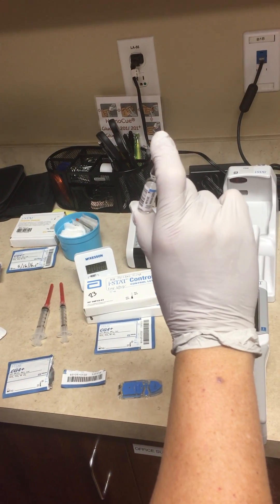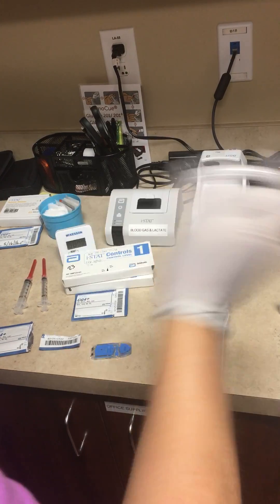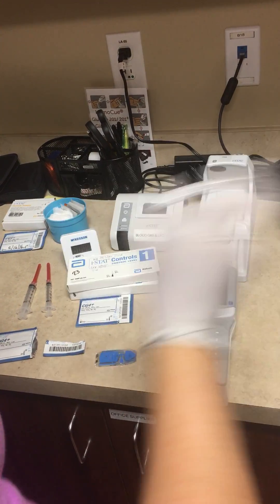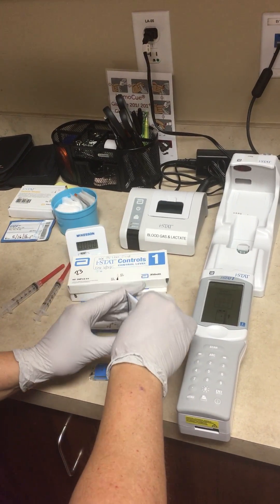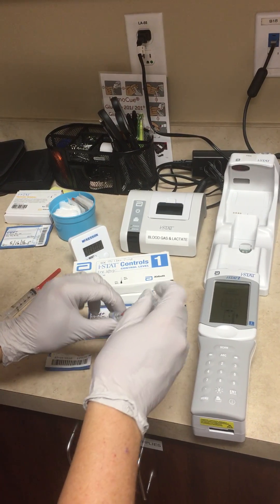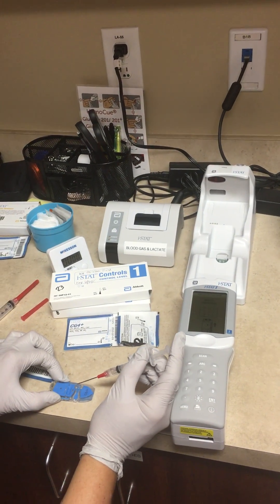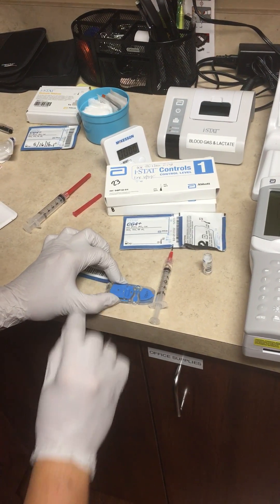Give it a count of 20 and shake it vigorously. Seriously, 20 counts. Now to protect yourself, use the sleeve of the cartridge pack to put over the vial to break the ampule. Pull up your control in the syringe — you don't need a lot, just a little — and you want to avoid getting a bubble at the base, so you've got a bubble at the top but not at where you're going to put the solution in. Put your blunt end needle into the well of the cartridge.